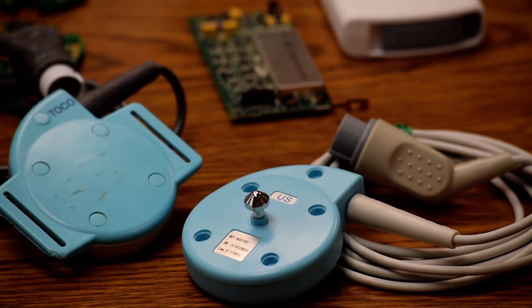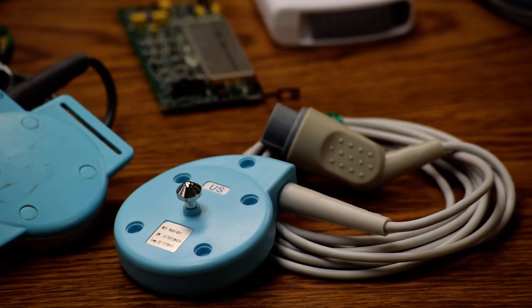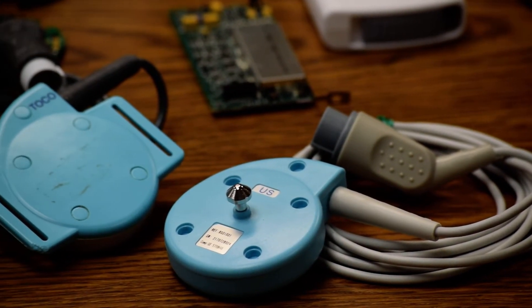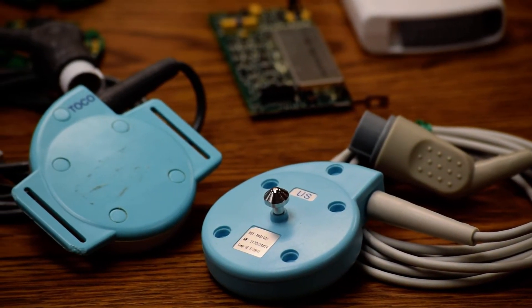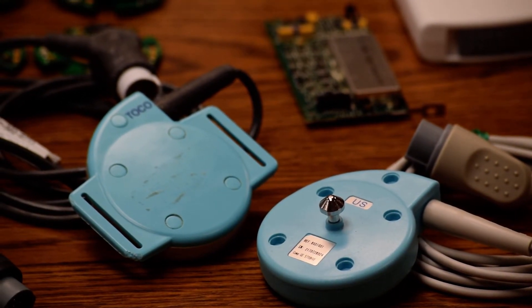So if end user takes care of coiling the cable circularly with as large diameter as possible or stretching it out completely while usage, it can last longer.